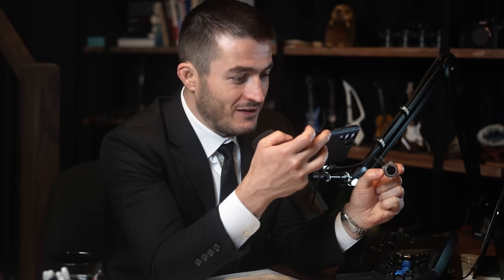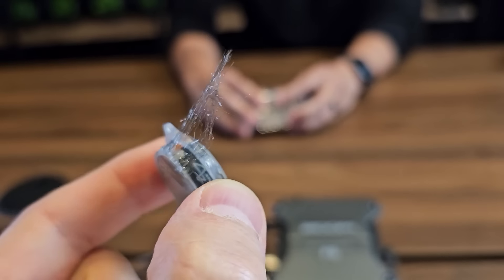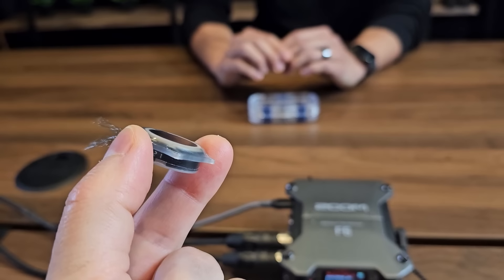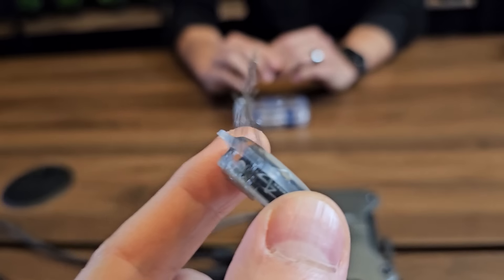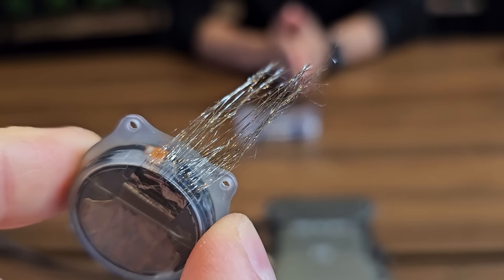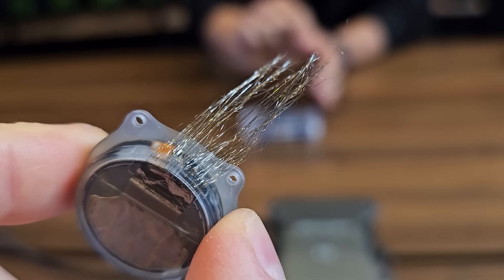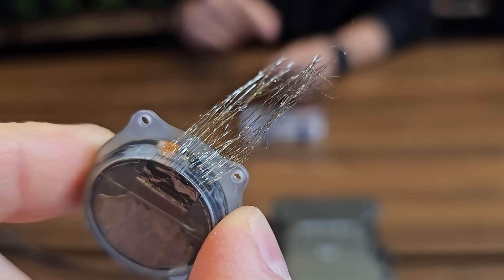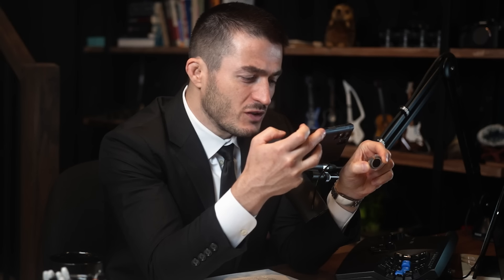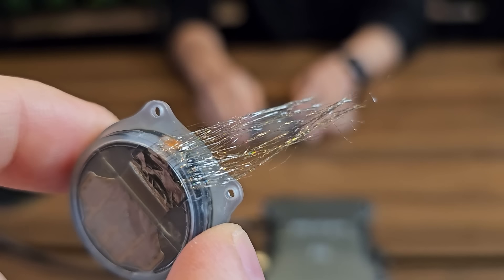Those threads look tiny — that is really incredible. Most of the volume is the battery. The threads themselves are quite strong, and they have a very interesting feature at the end called the loop. That's the mechanism by which the robot is able to interface with and manipulate this tiny hair-like structure.